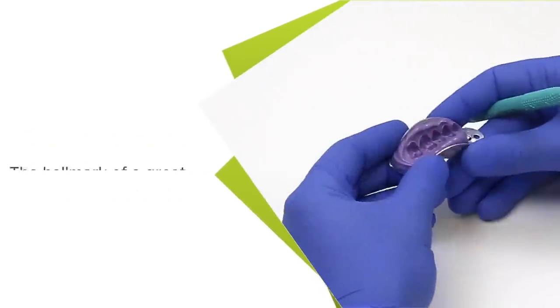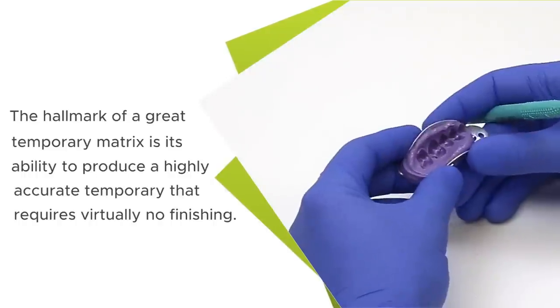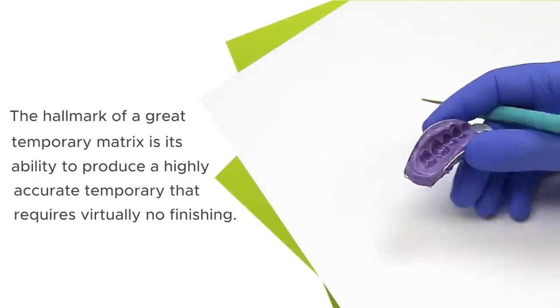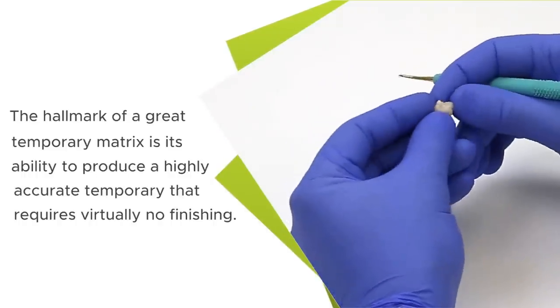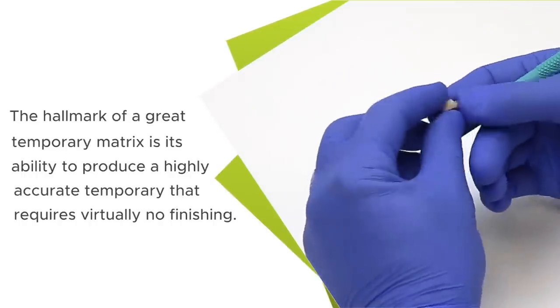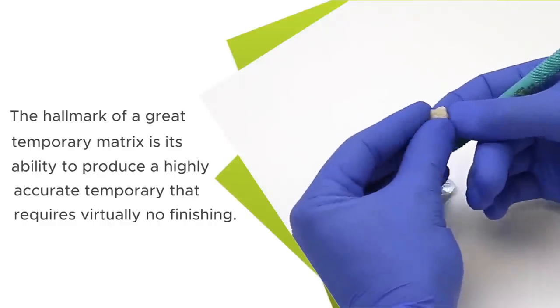The hallmark of a great temporary matrix is its ability to produce a temporary that is highly accurate and requires virtually no finishing.